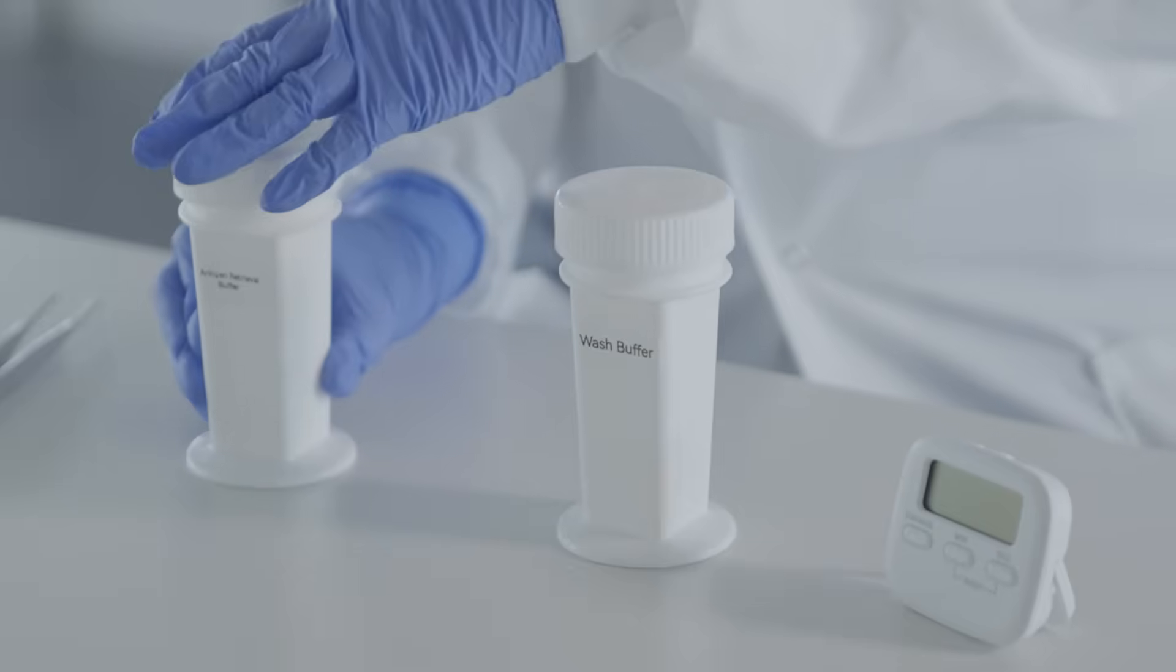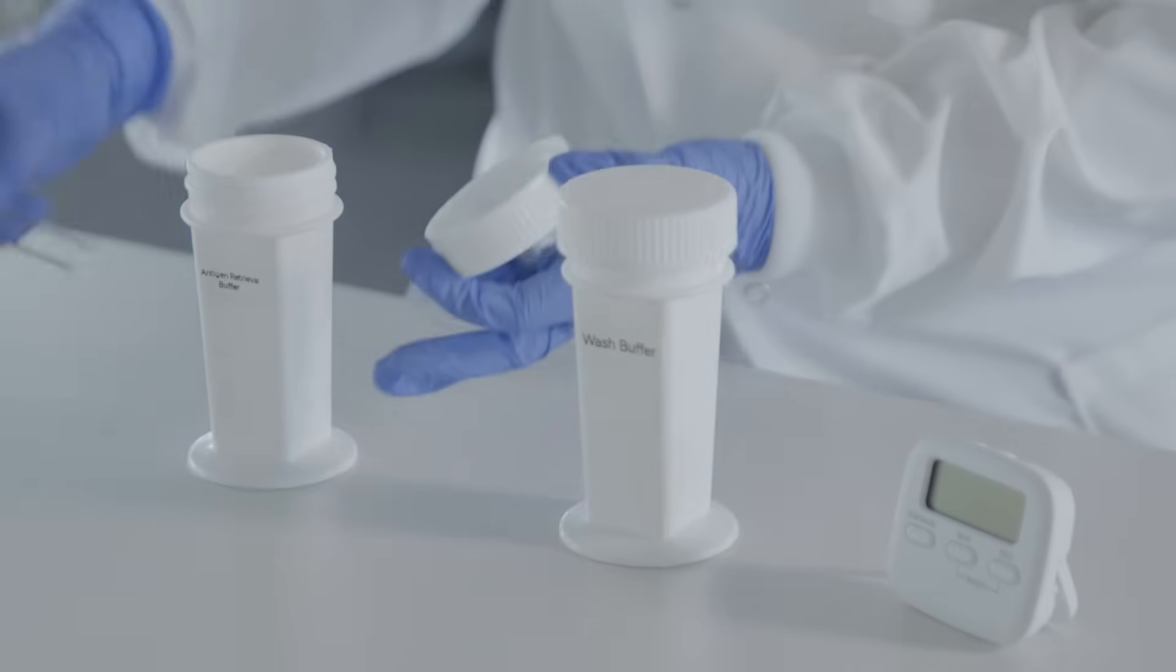Once cooled, wash the slides three times with wash buffer for three minutes each.